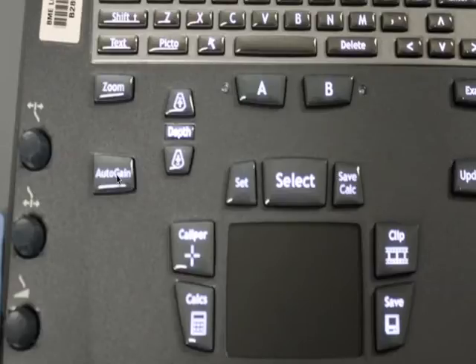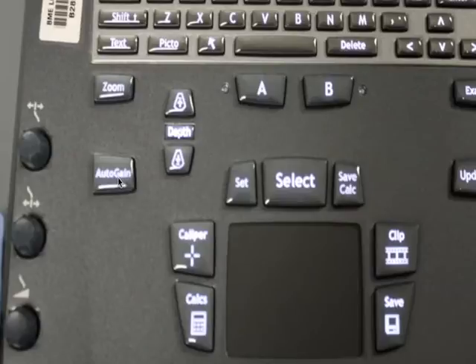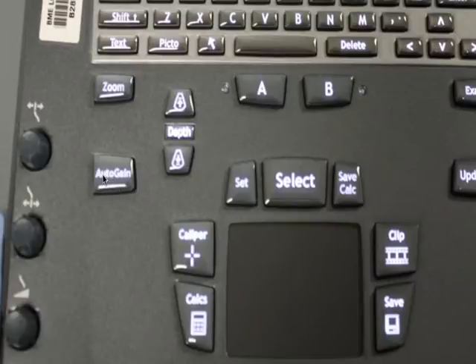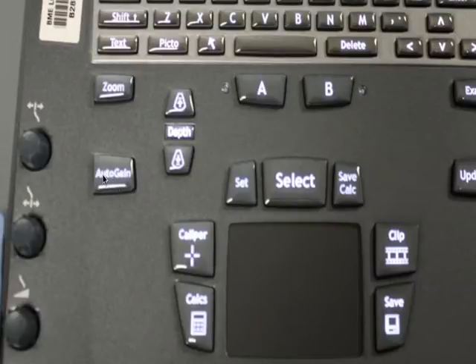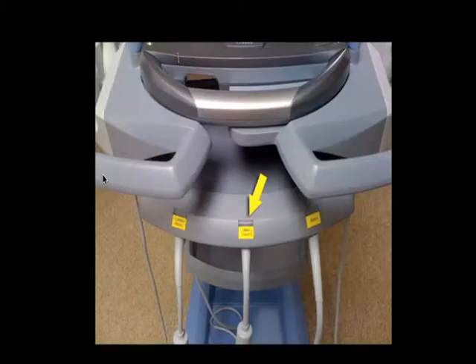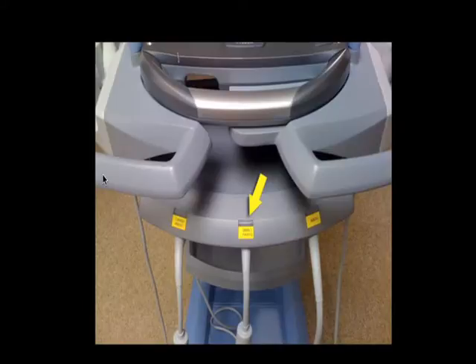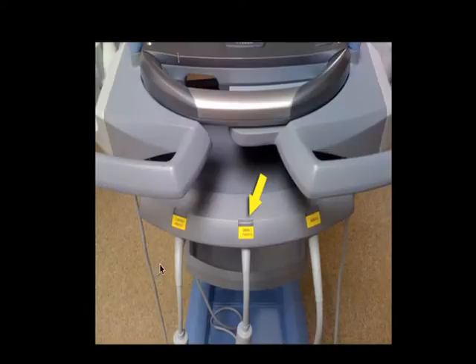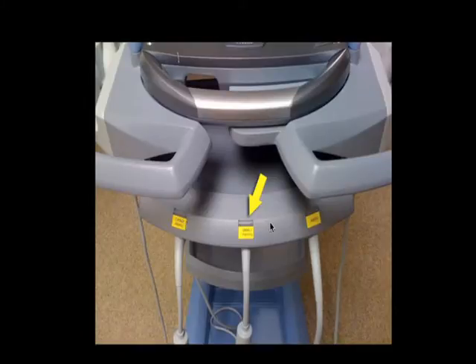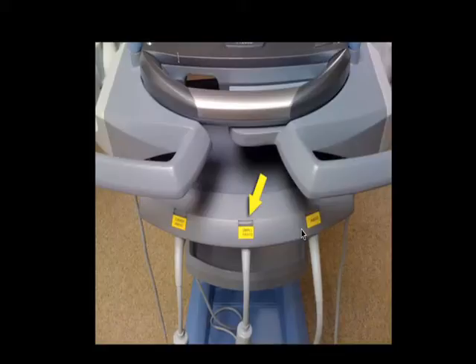The auto gain button, while encouraging to allow the system to select the appropriate gain for you, I do not think is a generally helpful tool — I've never found it to be helpful and I don't encourage you to use it or rely on it. All of our M-Turbos will have three transducers connected at any given time through a triple connect system. Switching between them, you simply press the corresponding button on the triple connect system to alternate, and you can do this at any time during your scan.